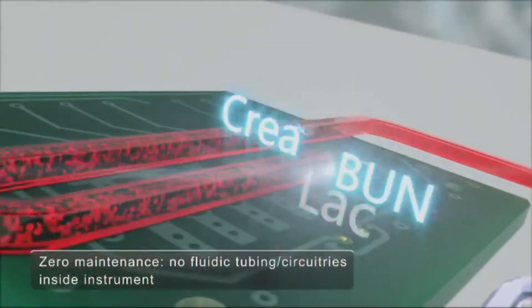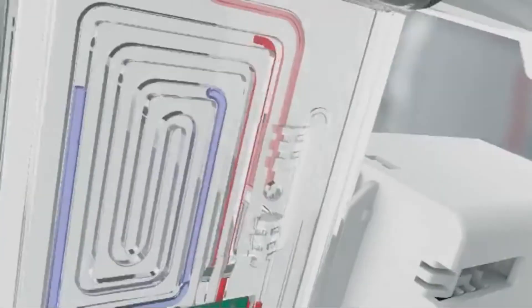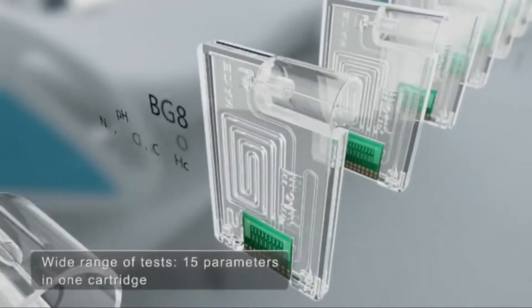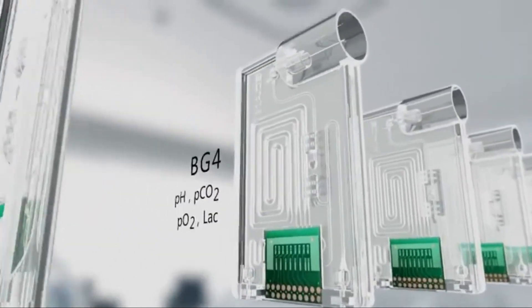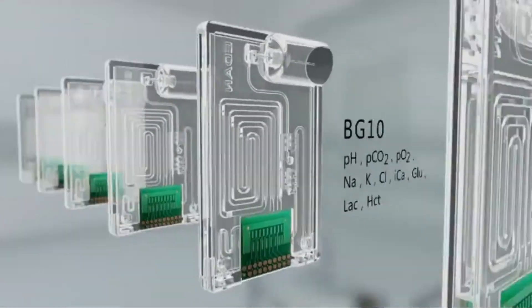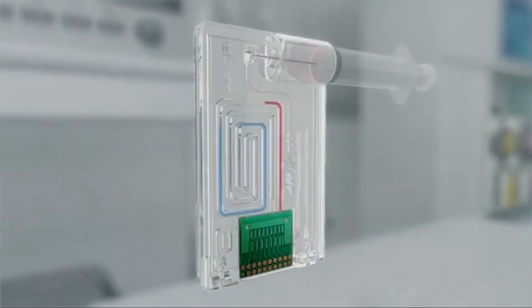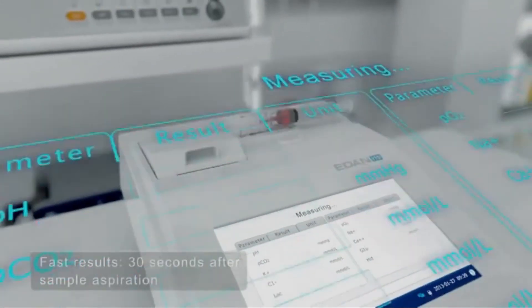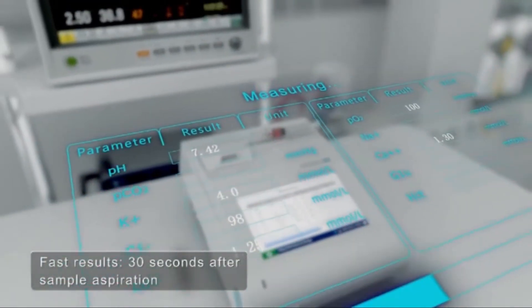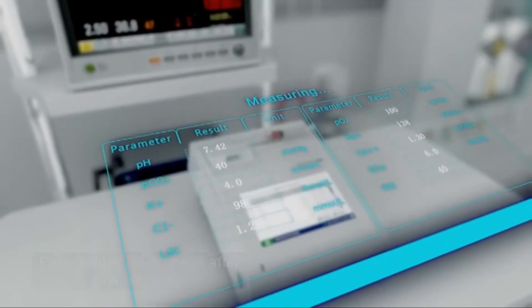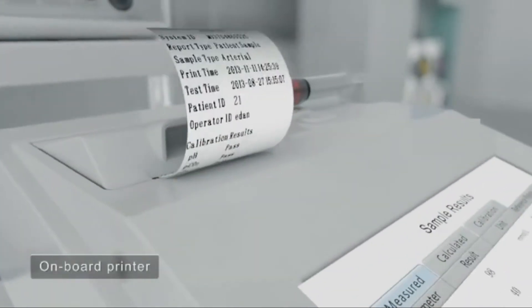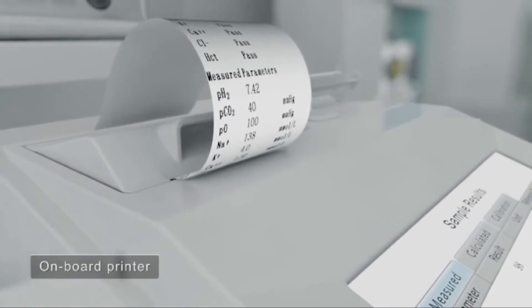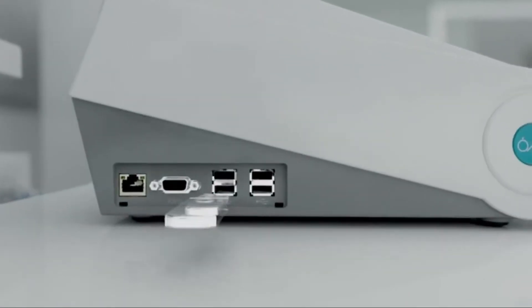Whole blood samples are placed in tubes, on reaction cuvettes, or on test strips and loaded into the analyzer. The operator may select the tests being performed on the sample using a keypad or connected computer. Operators should be aware of the risk of exposure to potentially infectious bloodborne pathogens during testing procedures and should use universal precautions including wearing gloves, face shields or masks, and gowns.